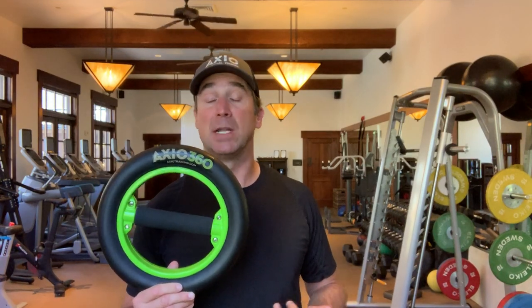I've been in orthopedic and sports rehab for over 22 years and a strength coach for nearly 30. I've been around long enough to see that a lot of the training devices we have in rehab for dynamic stabilization are fairly low-level devices — really designed for early stages of recovery, and they don't progress well with someone once they actually want to return to sport or higher-level function. The Axio was basically developed because I wanted something different.